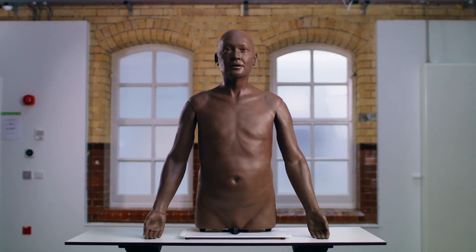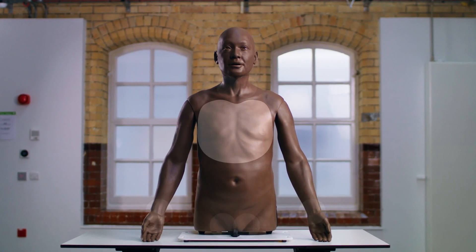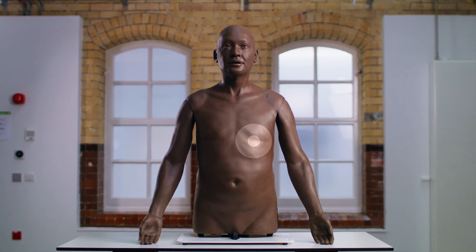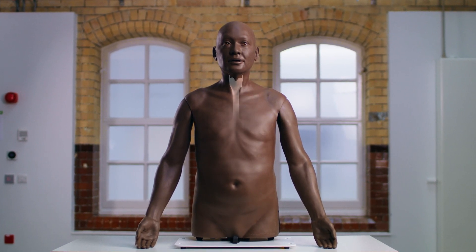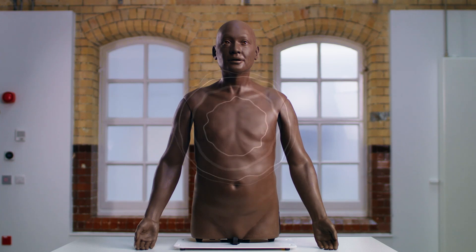It exhibits palpable pulses, lifelike breathing, apex beats, thrills, heaves, and movable trachea alongside heart and lung sound profiles.